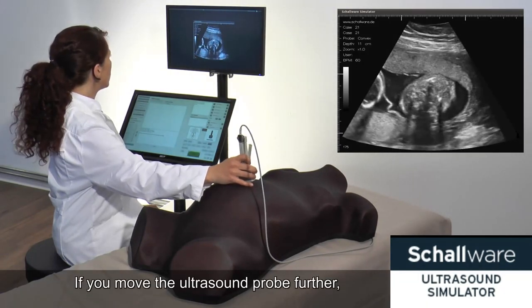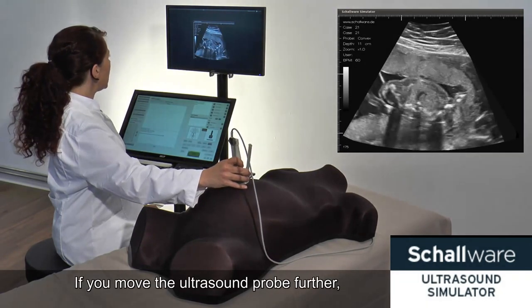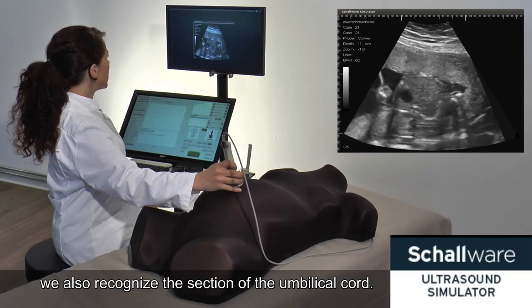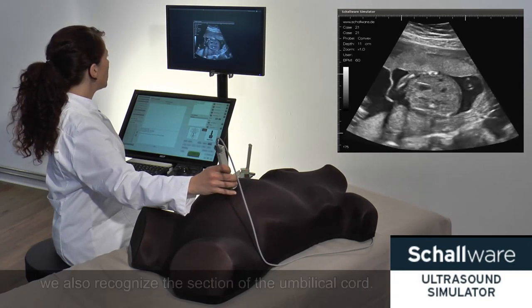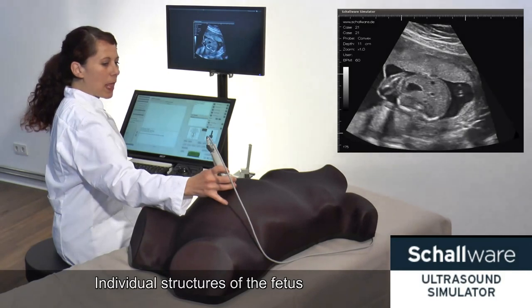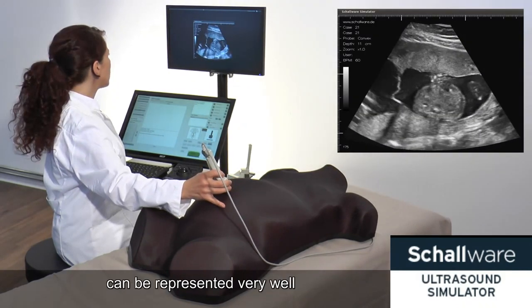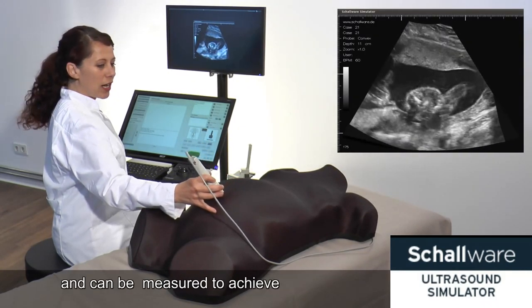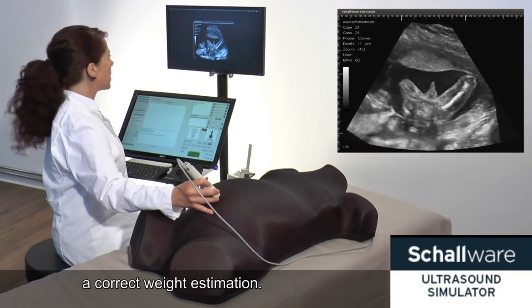If you move the ultrasound probe further, we also recognize the section of the umbilical cord. Individual structures of the fetus can be represented very well and can be measured to achieve a correct weight estimation.